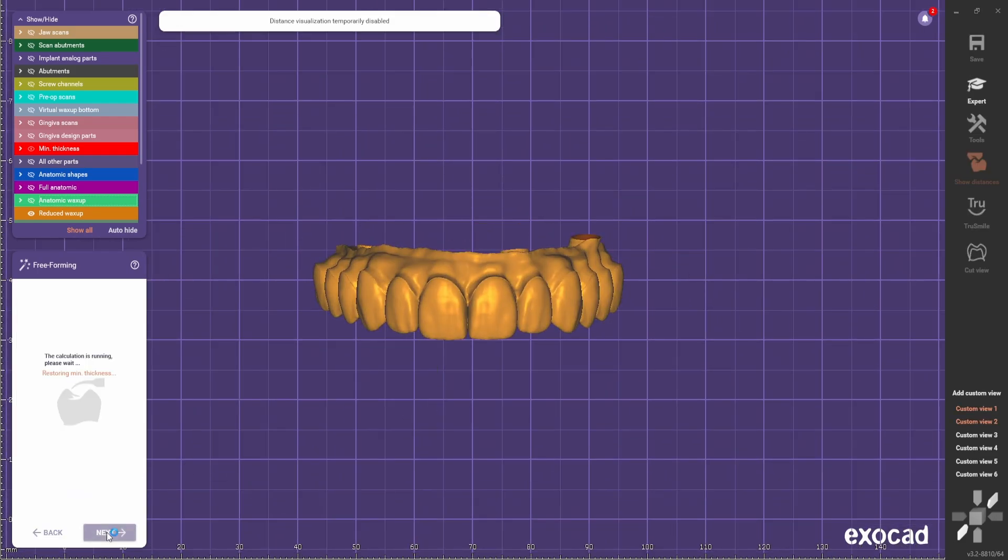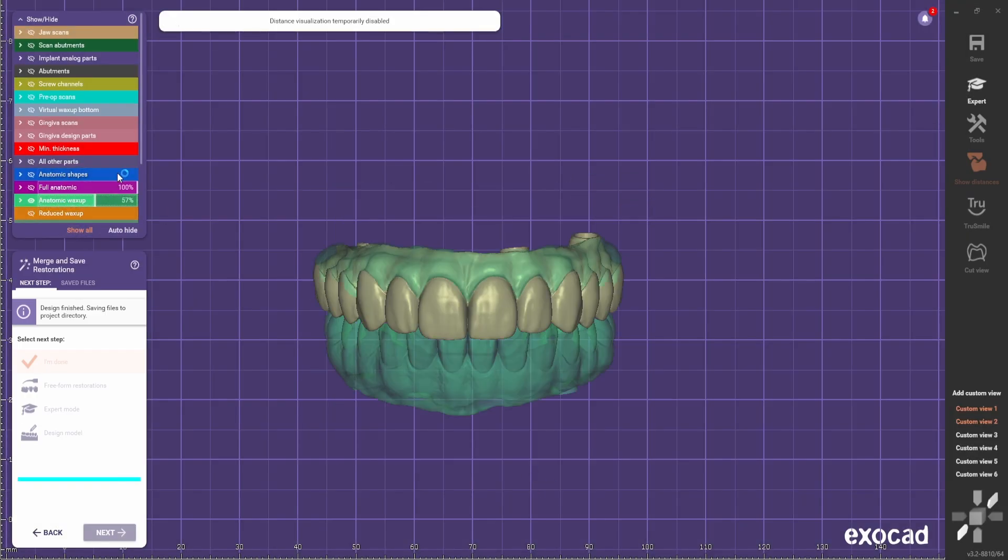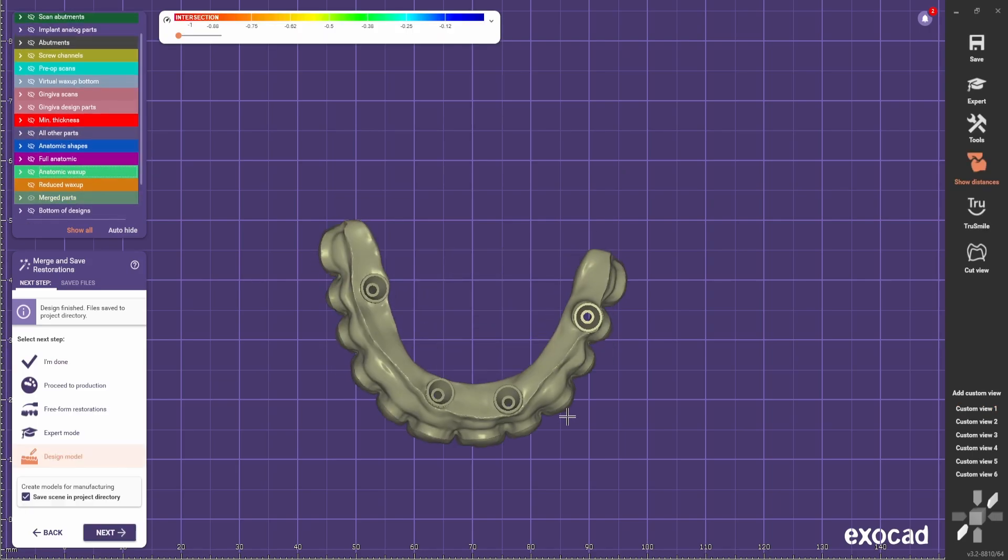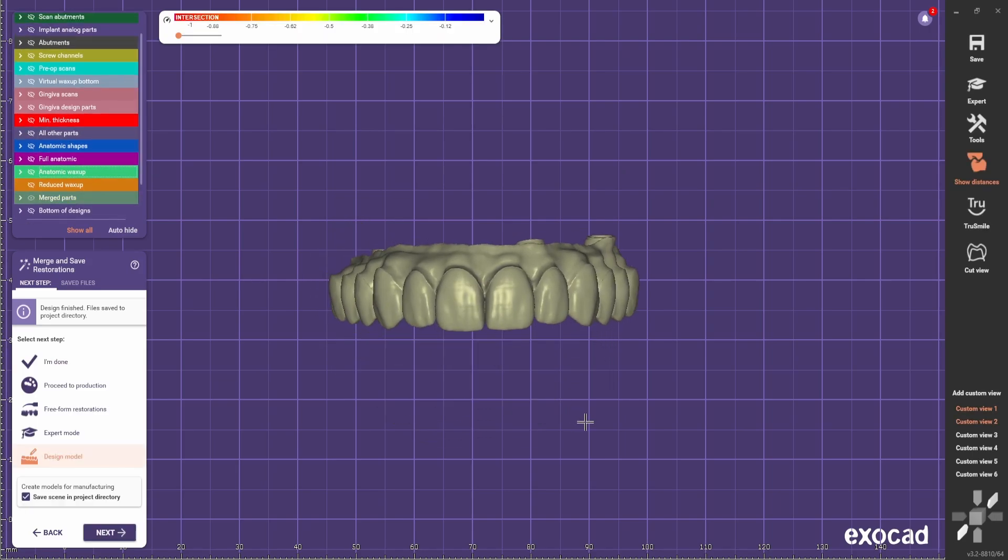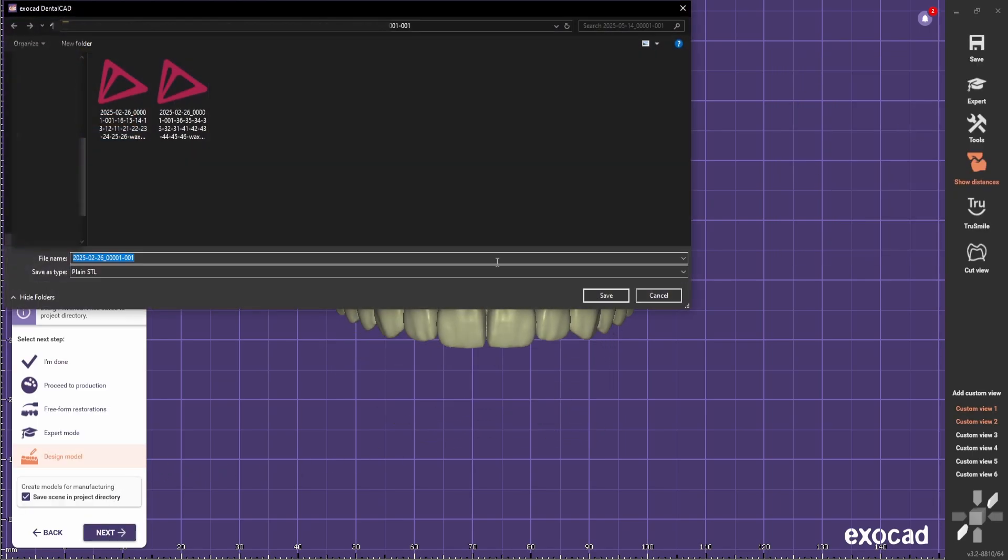Now you go next. After everything is merged, export the reduced file.